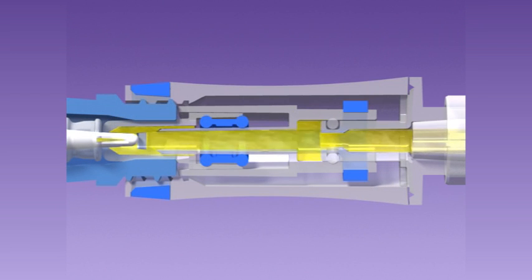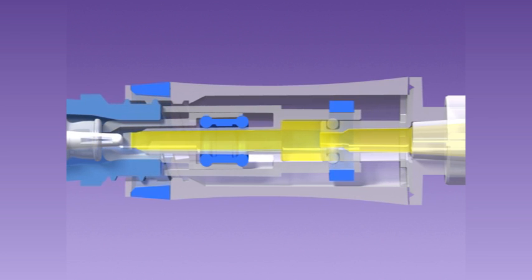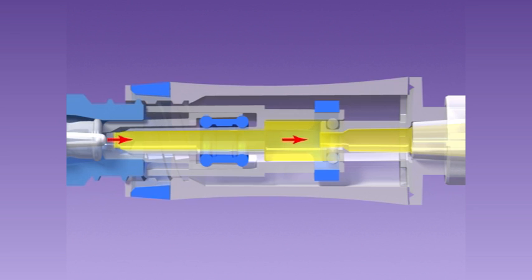When the Spiros is disconnected, the poppet automatically returns to the closed position and also provides a slight vacuum of fluid. This slight vacuum aids in aspirating any residual connection fluid into the Spiros for containment that may have come from the mating device.